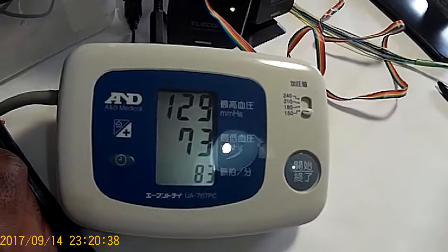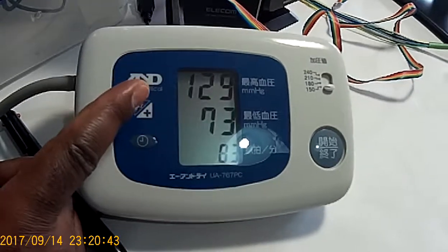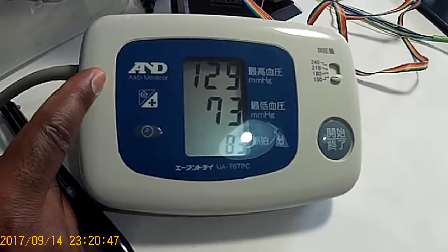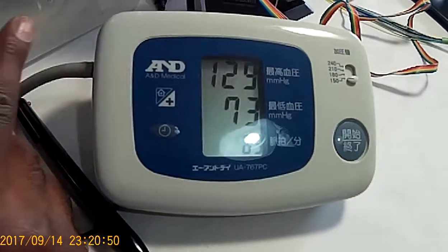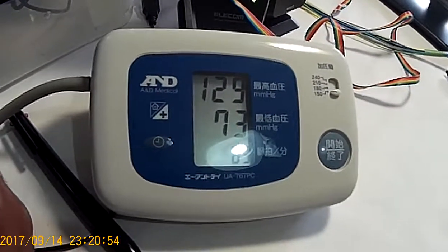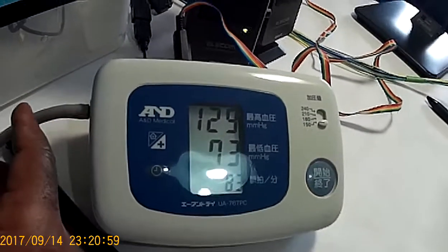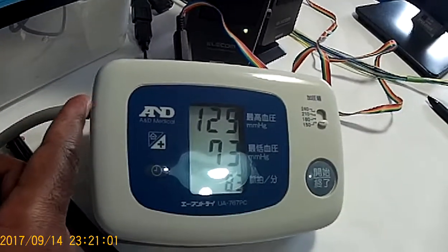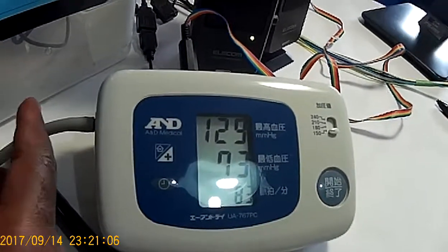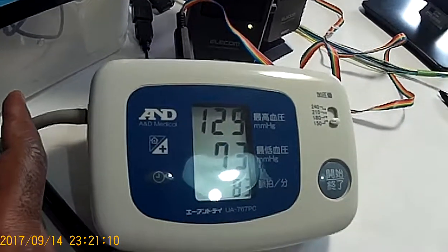So what happens next is this number has to clear off from the screen, and it takes a while for the blood pressure measurement device to send data to the EHealth kiosk, to the system running here. This latency is a design issue, and in future improvements it can be dealt with. But for now, we have to wait until the process goes through the routine.